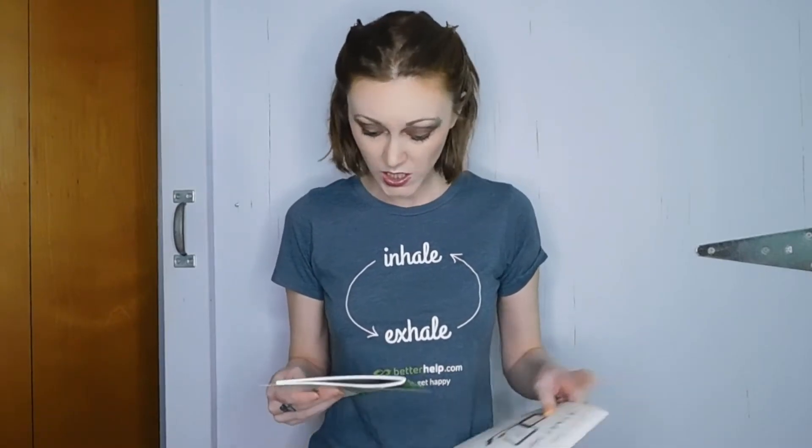Hopefully that's not the case anymore. The instructions say: receive an urgent low alarm when your glucose levels drop to 55 or below. The setting cannot be changed or turned off. I don't like that. I'm gonna set it as low as it'll go. I don't want a high alert — I do not need a high alert. So I'm gonna take it all the way up as high as it'll go. It goes up to 400.